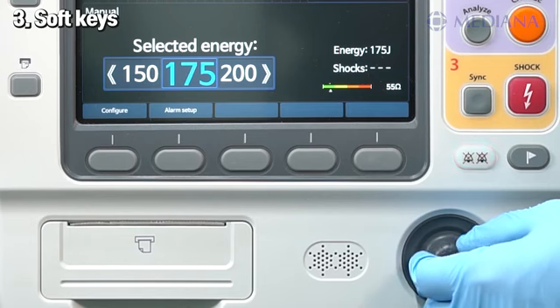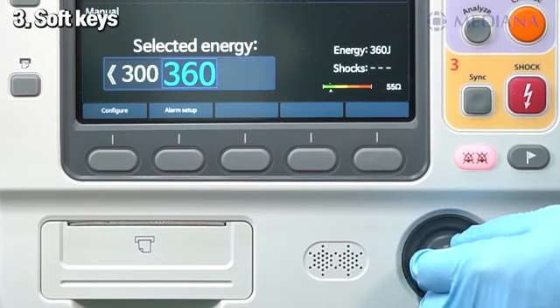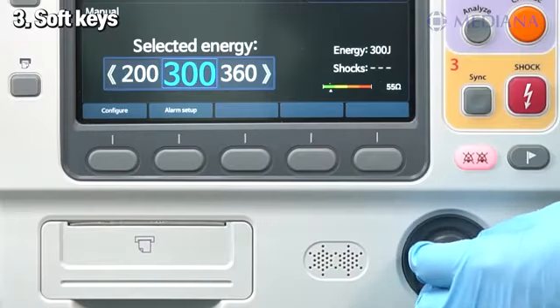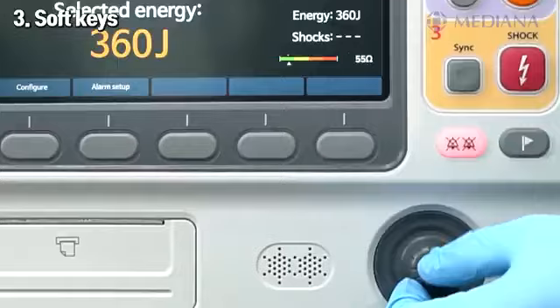If you have a numeric selection window open, turning the knob clockwise increases the numerical value. By turning it the other way around, it decreases the value. Press it again to select that value.